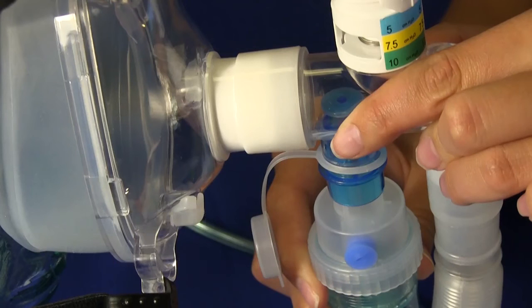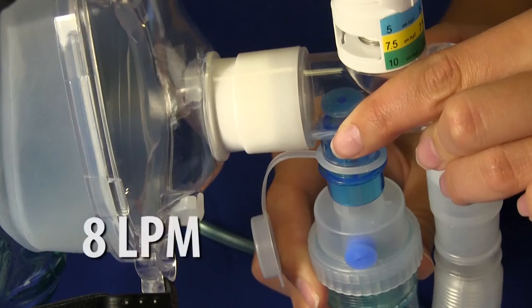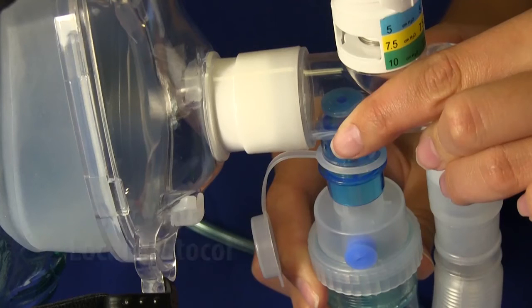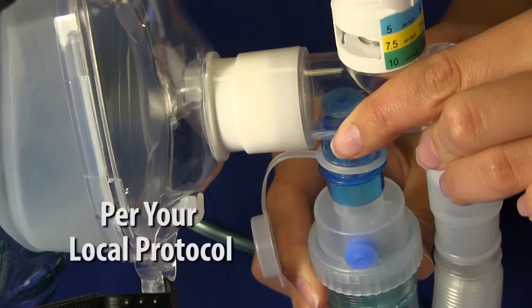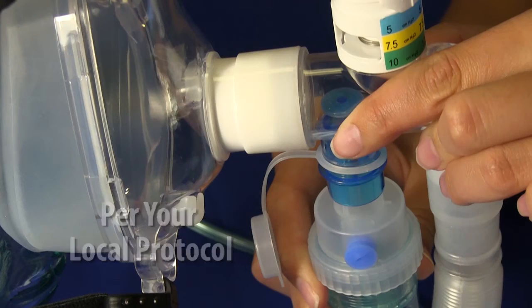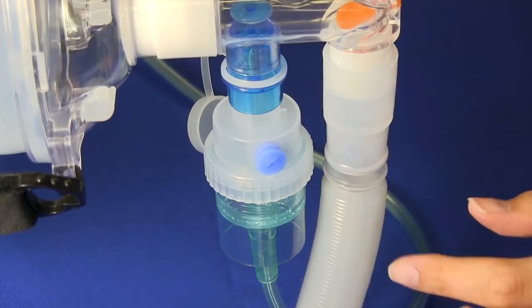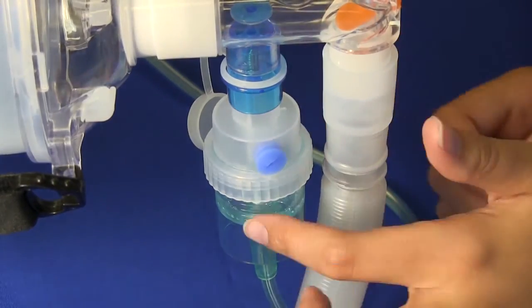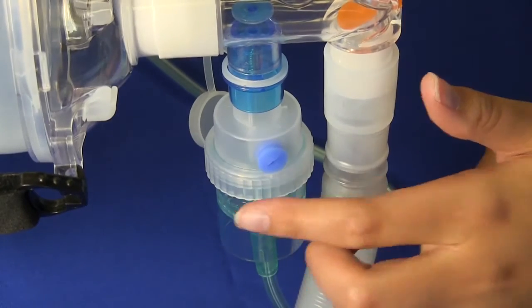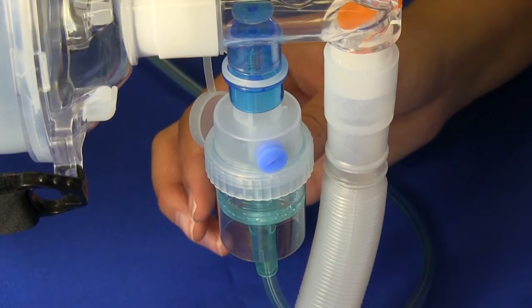You'll want to set your gas flow to eight liters per minute, or per your local protocol. Check for aerosol mist. If necessary, tap the device until it begins to nebulize.